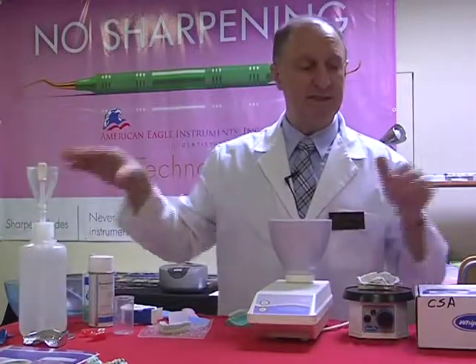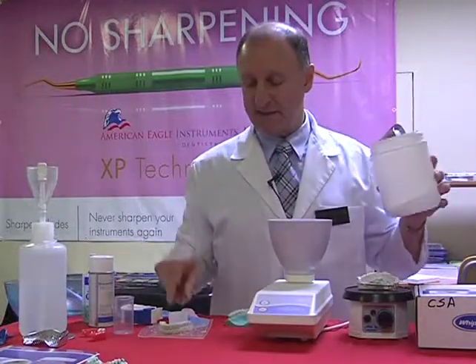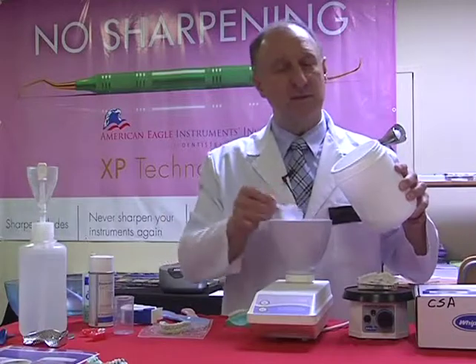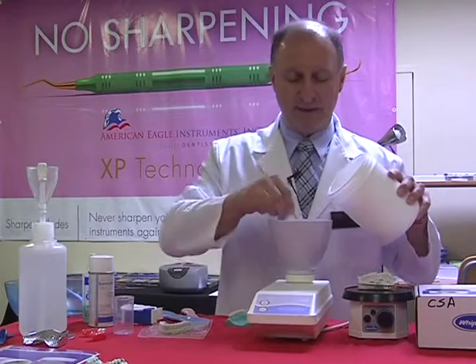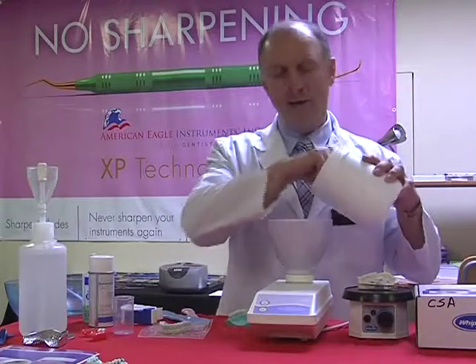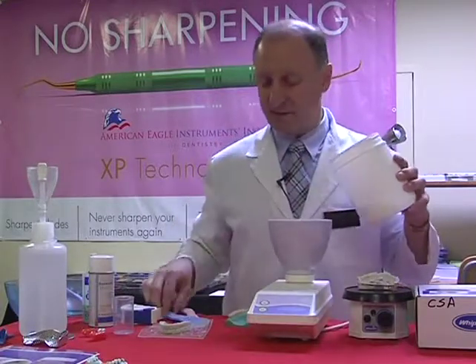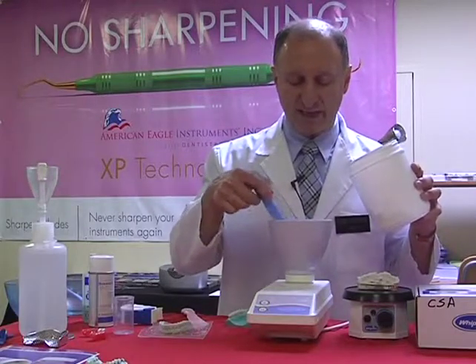Now at this point I'm going to use our stone. In this case I'm using a green stone. This has quite a long setting time, but it's got a nice working ability. What I'm going to do at this point is slowly sift the stone onto the surface. The stone will absorb into the water, and I'll turn this towards you in just a moment so you can see what's going to happen. It's going to reach a point where it saturates. That means the water will absorb the powder that I'm pouring in. The way we know we've got the best working ability is that on the surface of the stone we would have a small dry area, and it would look almost like cracking.